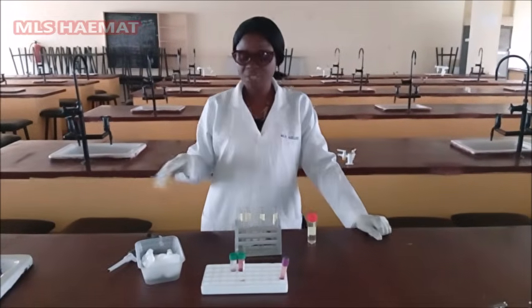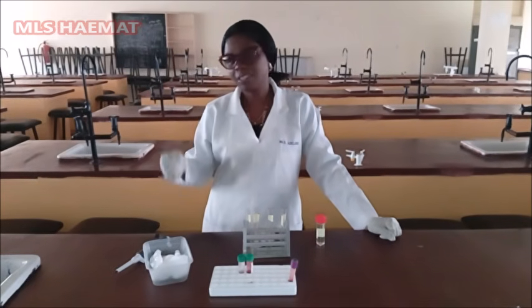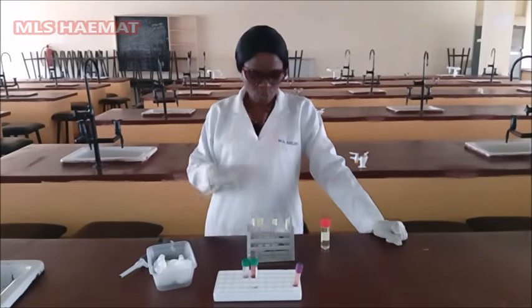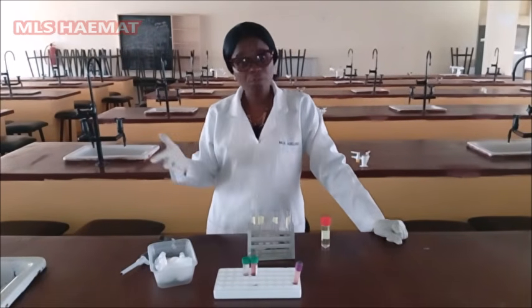Okay, so I'm going to be showing you how to do hemoglobin estimation. So, what is hemoglobin? Hemoglobin is the red pigment on red blood cells that helps red blood cells in transporting oxygen to different parts of the body. And why do we do hemoglobin estimation?